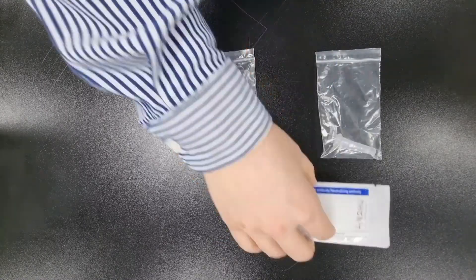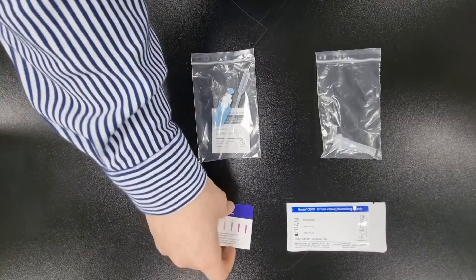After 30 minutes, open the kit box and place all components on a flat and clean surface.